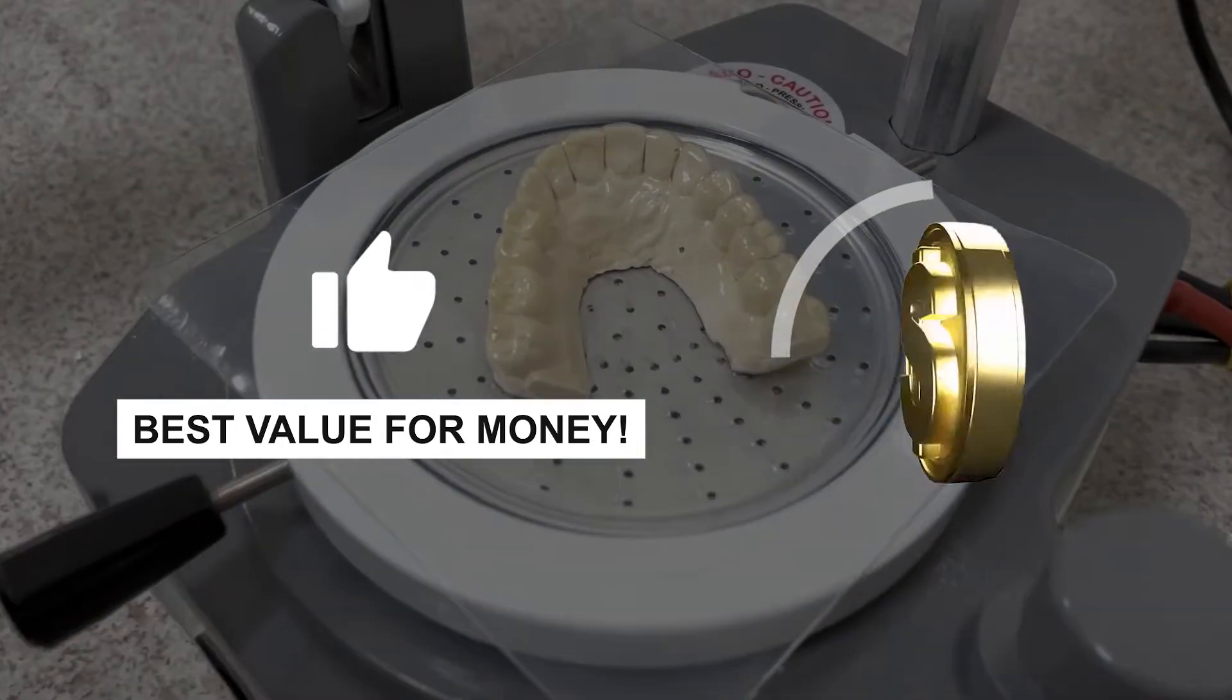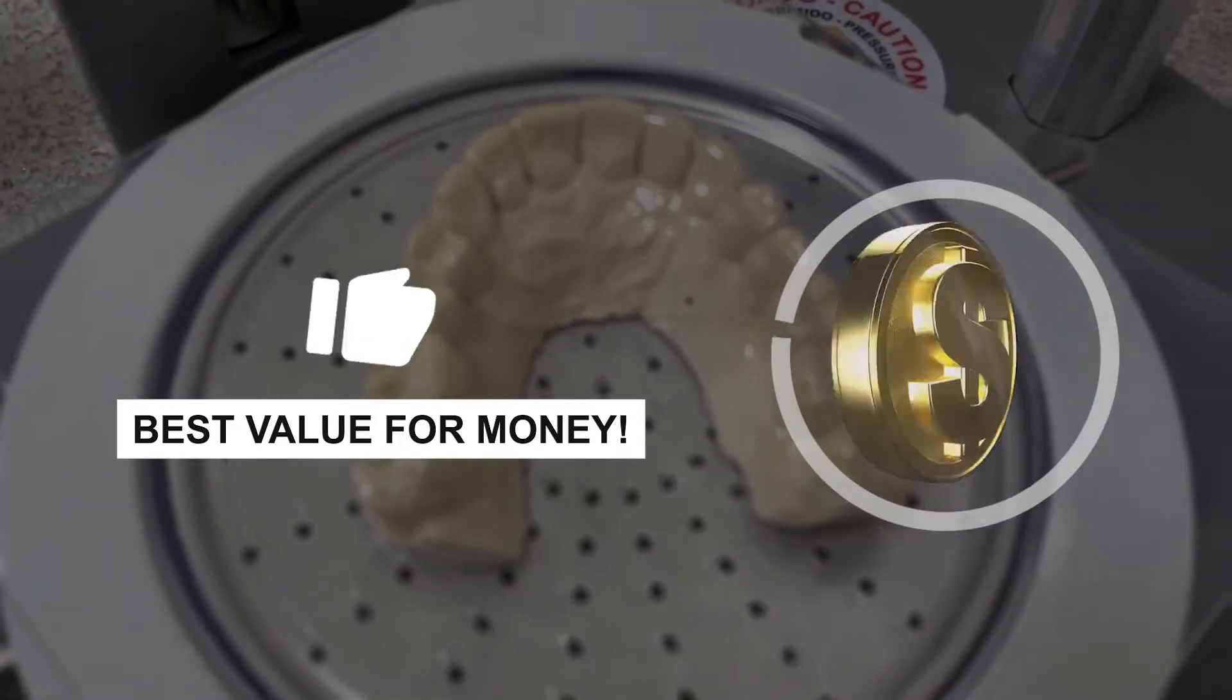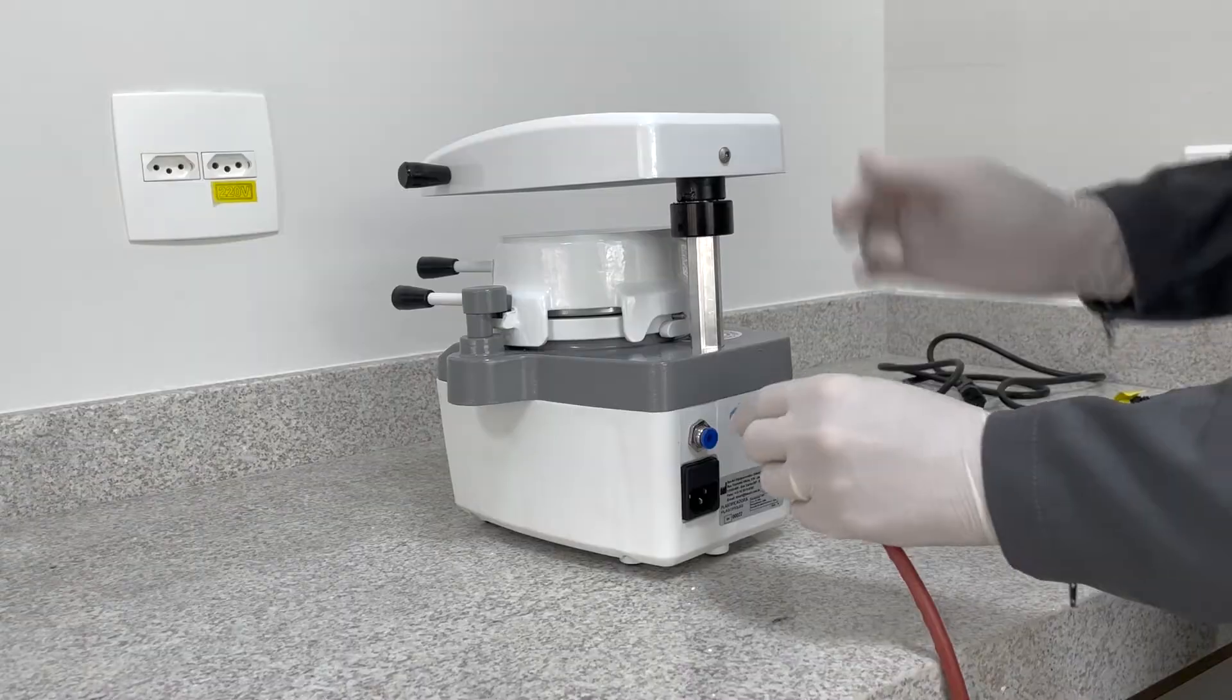The most cost-benefit pressure machine on the market. Simple installation and easy operation.